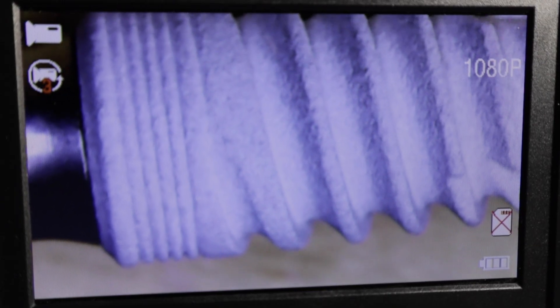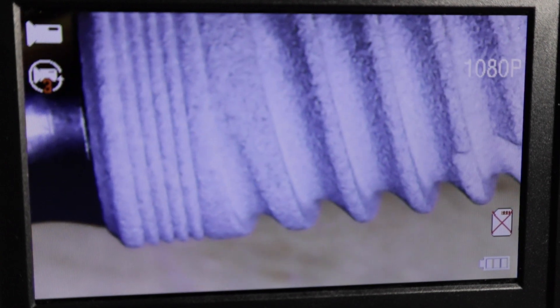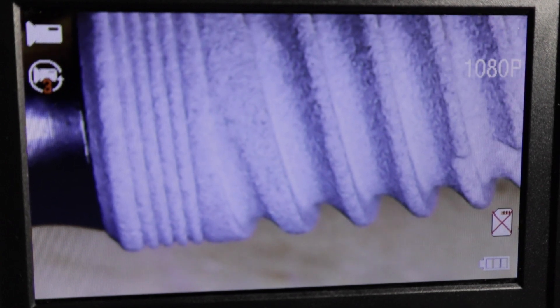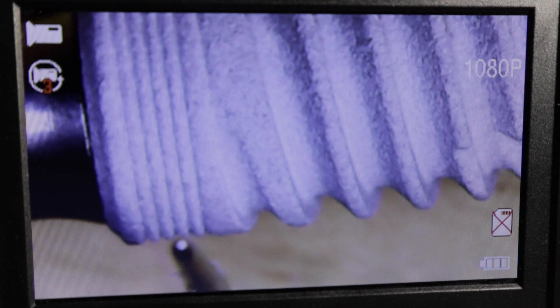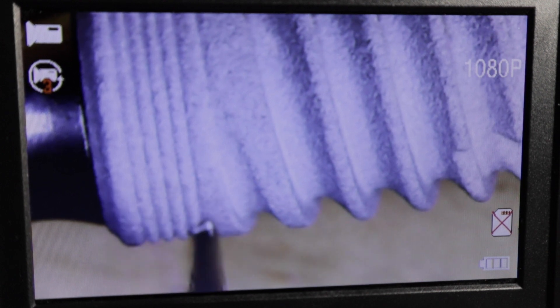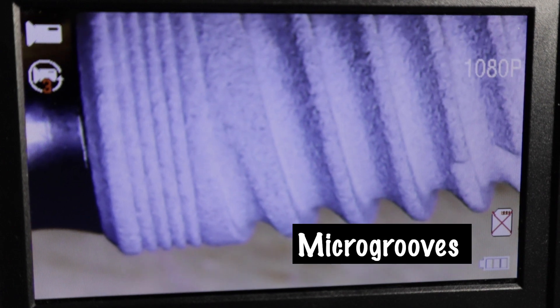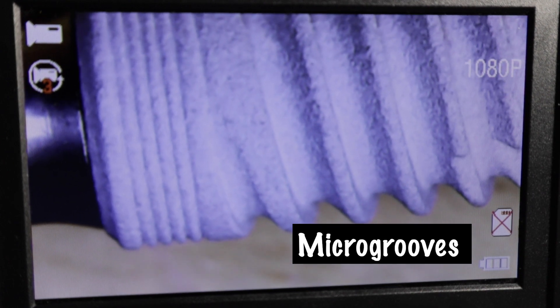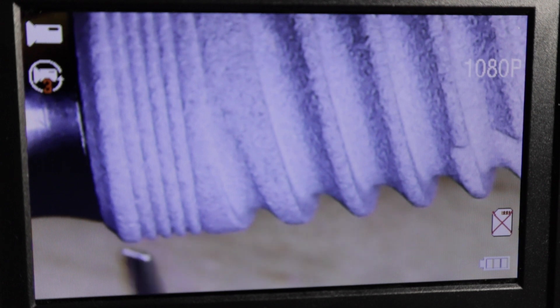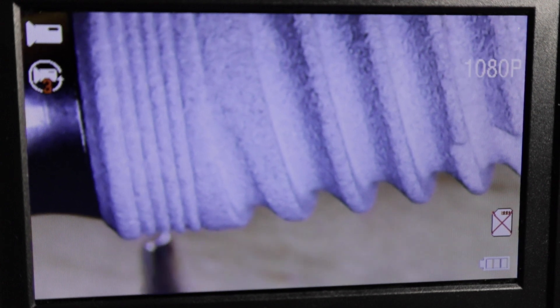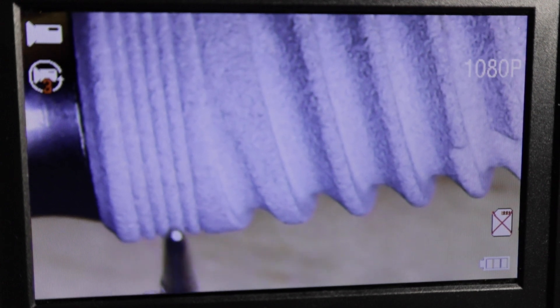So I'm going to have to whip up the microscope for this part to explain the implant design. So there's a couple of key things that I look for. One of those things is right over here. See, right here it's got some micro threading. So this is near the platform. The implant has some micro grooves that help relieve some of the pressure that can build up at the cortical plate. So having these little threads is important.